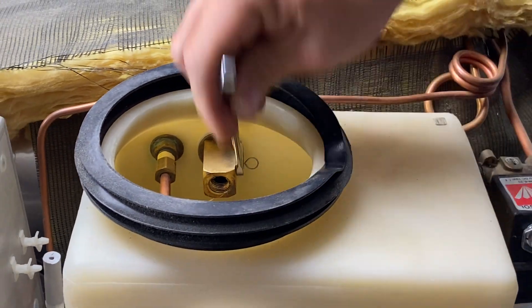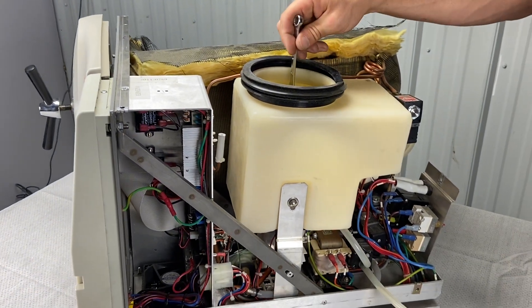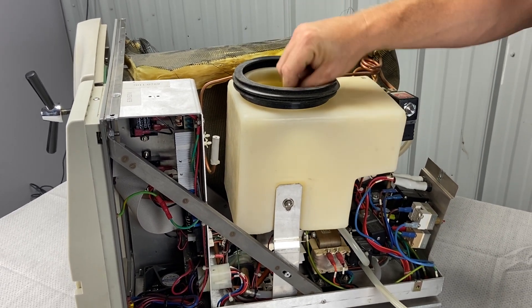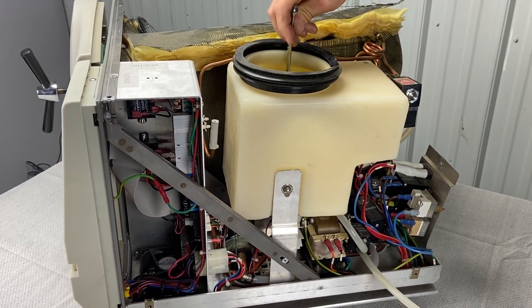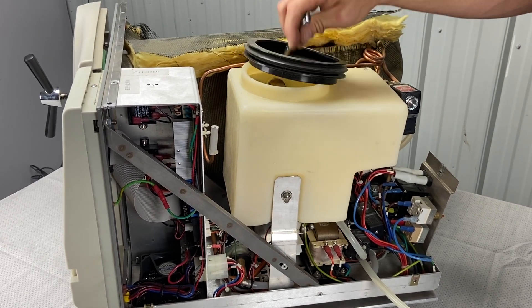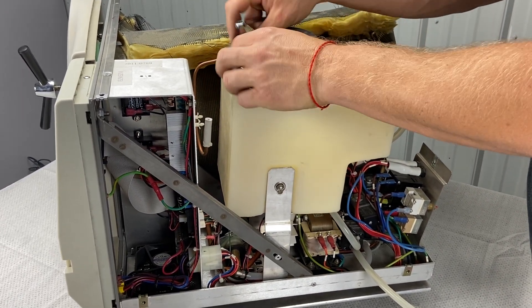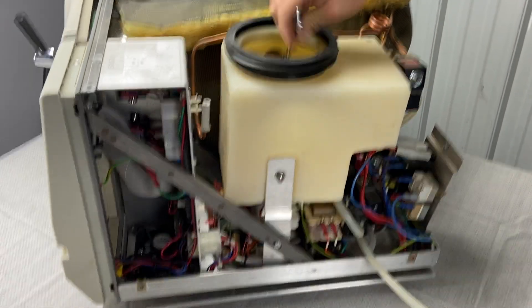Using a 10mm wrench, unscrew a little bit, then flip the wrench and unscrew a little bit more. You have to flip the wrench around each time to get it moving. You can't put a socket on this because of the way the air jet is set up — unless you're replacing it, in which case you could cut the air jet and then put a socket on it, but let's not do that. Now we're taking the air jet off.